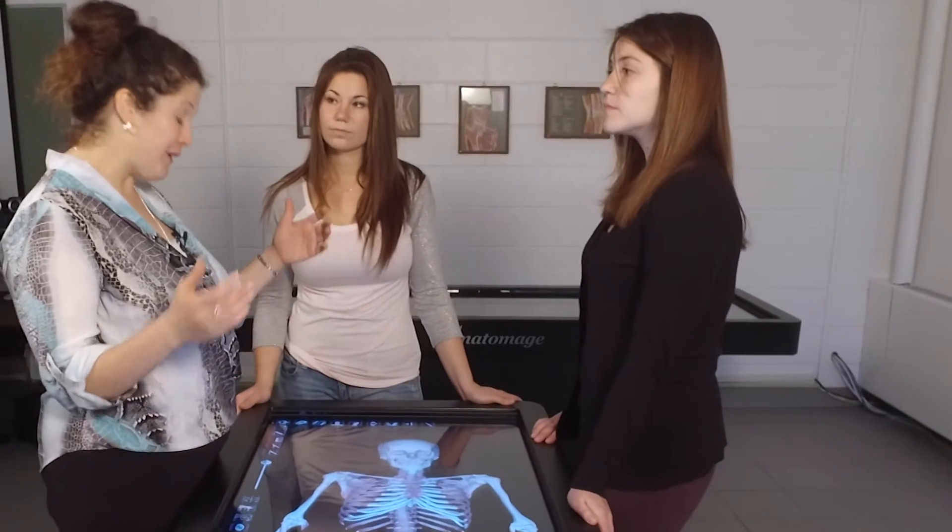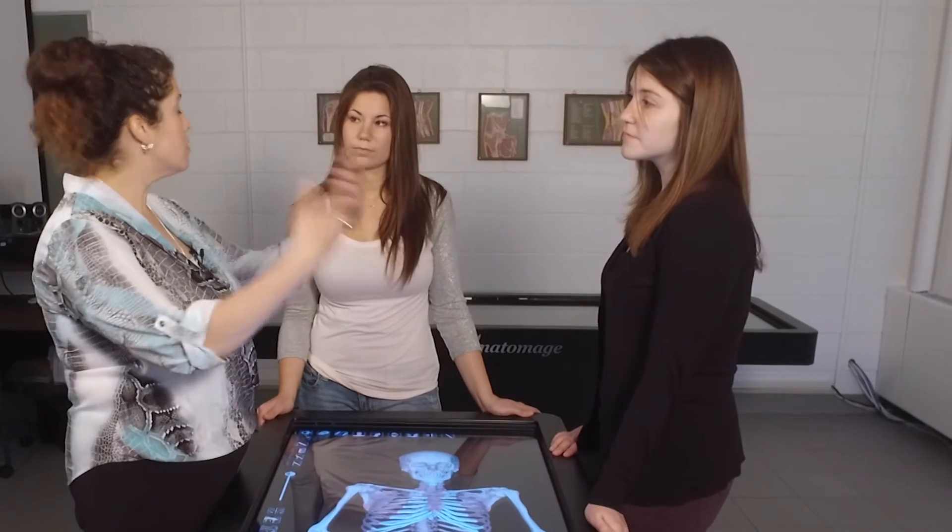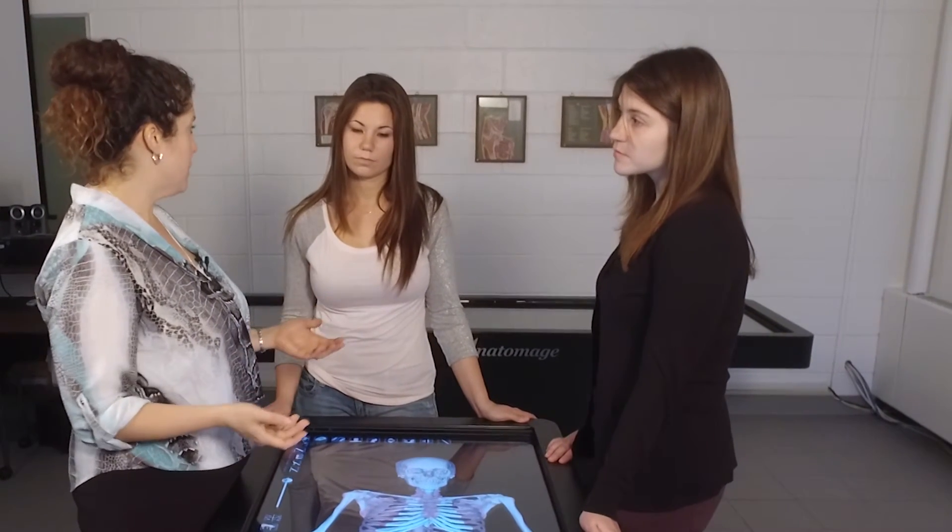Utilizing the Anatomage tables as a teaching tool has really revolutionized how anatomy is taught. The fact that Maria College, as a small institution, has not just one but two Anatomage tables has been very exciting for us. It's really exciting that students coming to Maria can benefit from this technology — it truly sets us apart from other institutions and provides a very unique learning experience that you would not be able to gain at comparable institutions in the area.